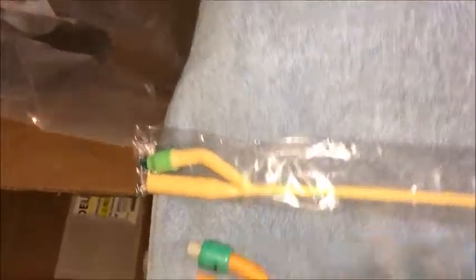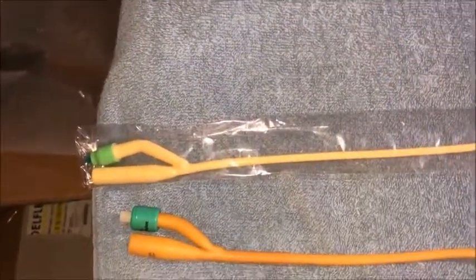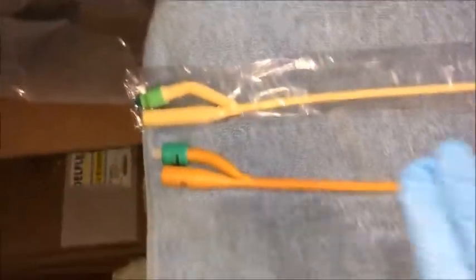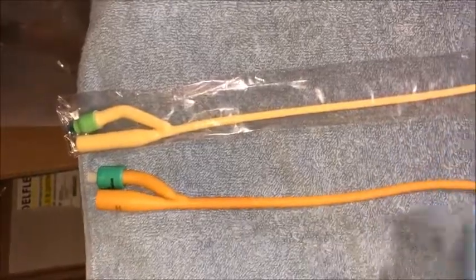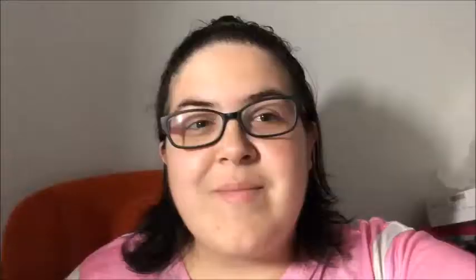Just to show you guys what it says there — it does come in a wrapper. I wanted to show you that so when you take it out of the packaging initially, it is still covered and sterile. I just wanted to share that with you guys.